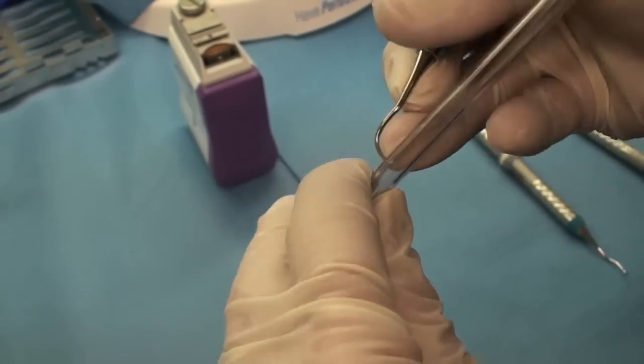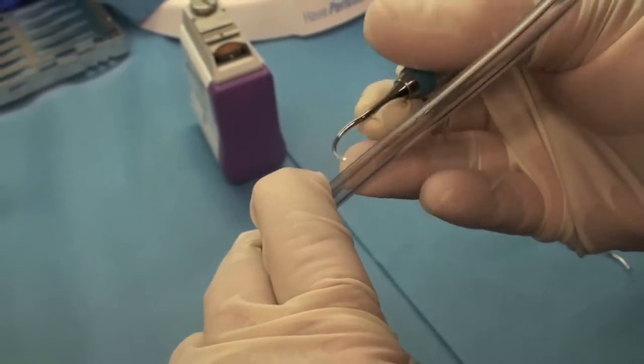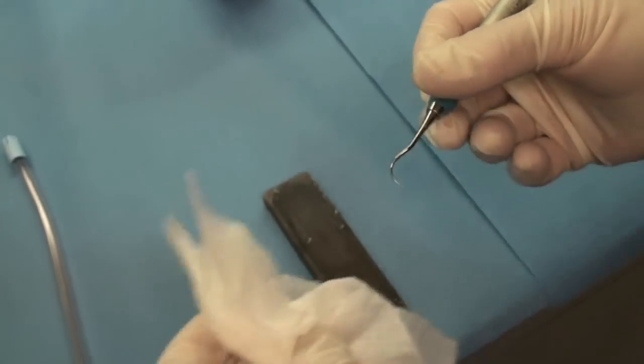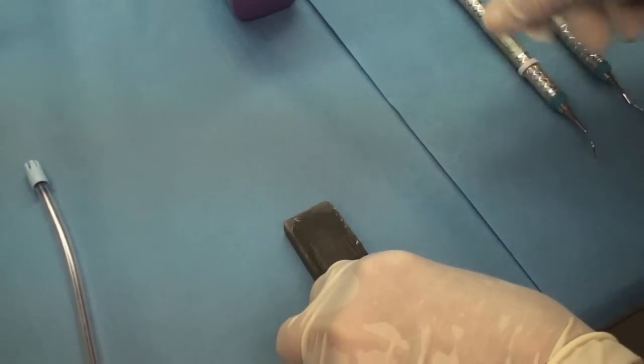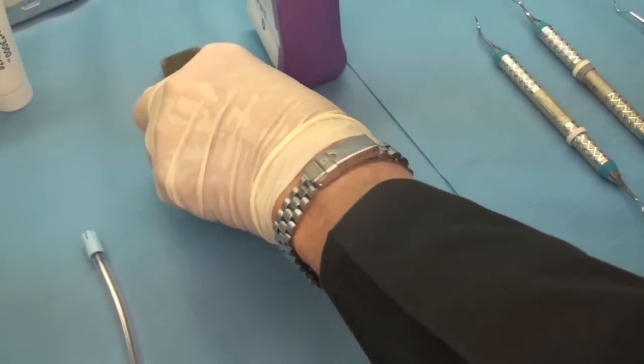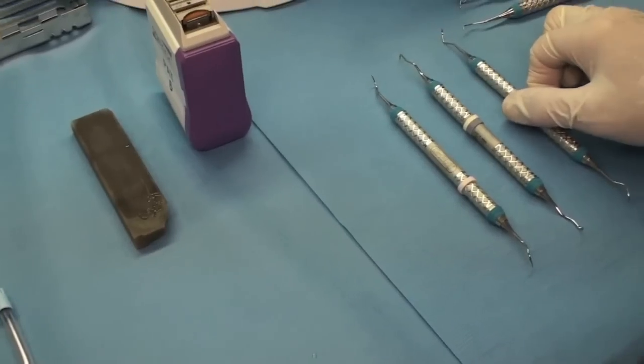But whatever system you use, they all work. And even if you keep up with it, you see I didn't take that many strokes even to get it sharpened with a hand stone. The beauty of keeping up with your sharpening is that it won't take very long every time you go to sharpen.